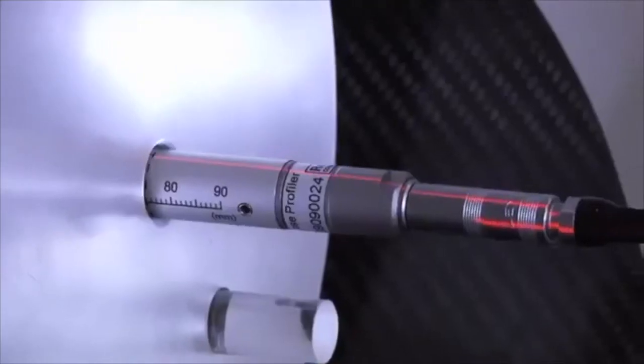Align the phantom with the lasers so that the CT dose profiler is in the ISO center.